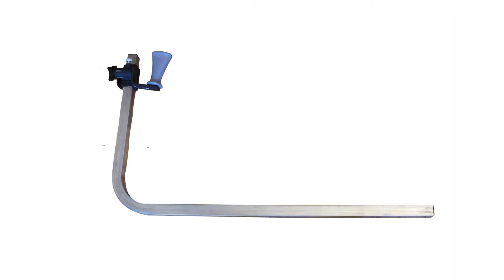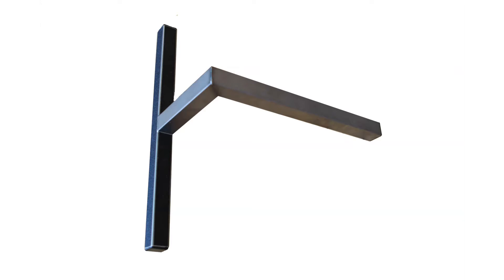We will need the elbow/shoulder adapter. The pillow may be required for comfort, and the footrest.